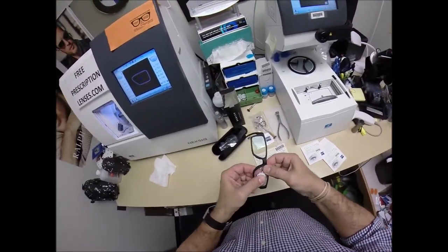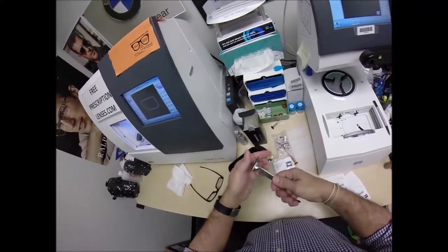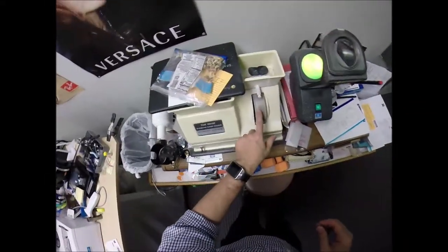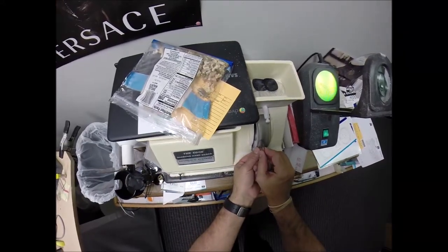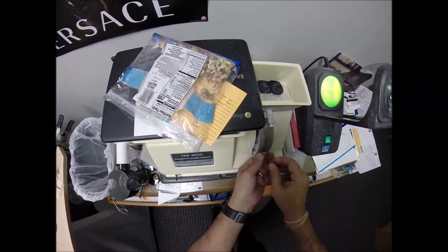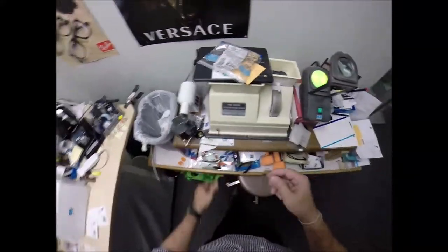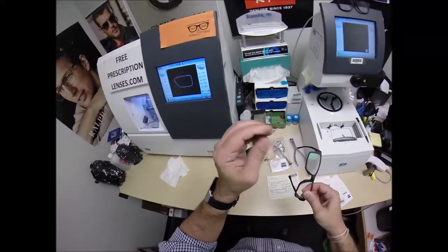Let's go old school. Let's do something different — make me work for it, same way Corey earns his money. I'm going to go to my hand stone, which is just like the cutting wheel. There's that little bevel wheel there. I'm going to go around and make this just a little bit smaller. That optical sawdust is flying up. Let's see if this fits — if not, I'll take some more off. You can see the sawdust on my hands.